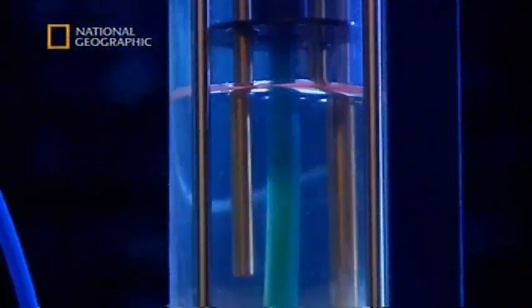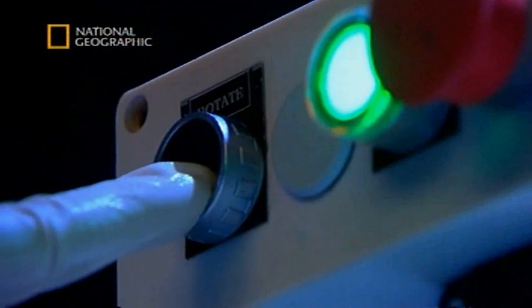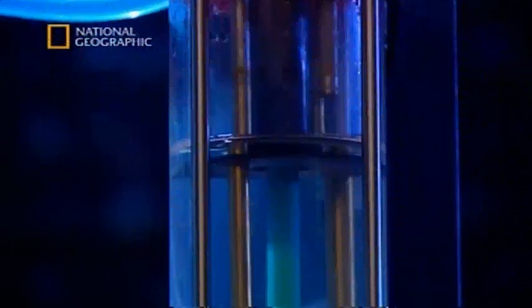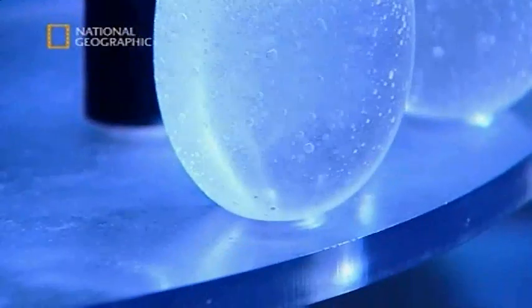How porous is the rubber? To test for any microscopic holes, each condom is filled with 300 milliliters of water. Then they're dried off and rolled. If nothing spurts out, it's a pass.